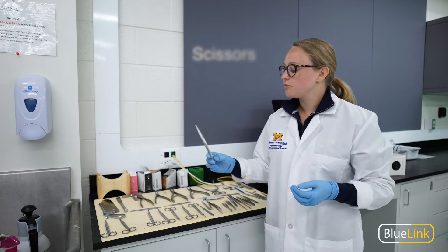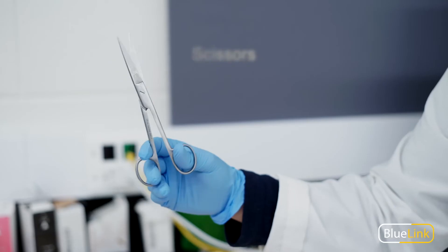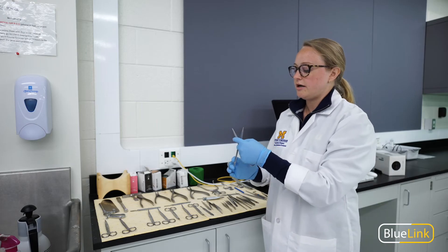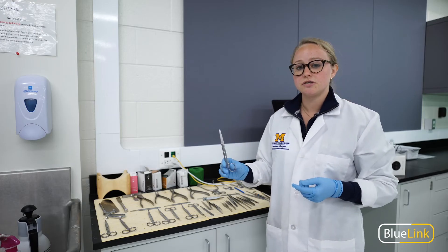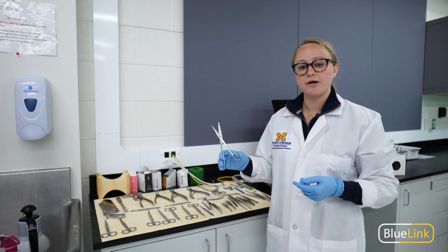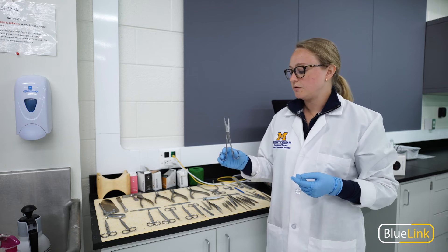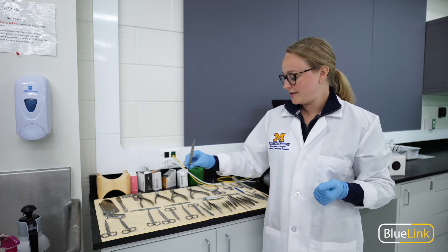Scissors can also be used for a specific form of blunt dissection, where the outer edges of the blades are used to spread your way through fascia and fat, and I will demonstrate this more clearly in a future video.